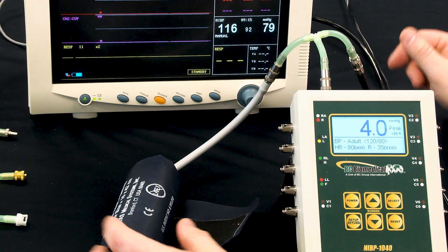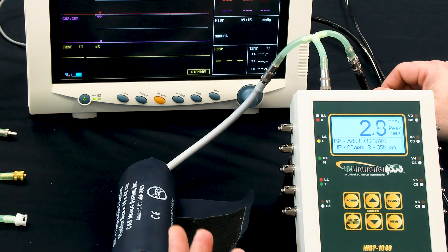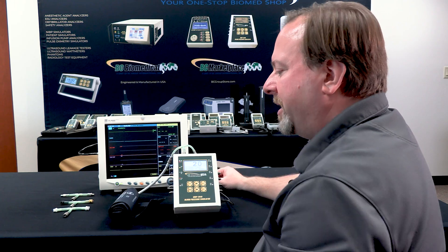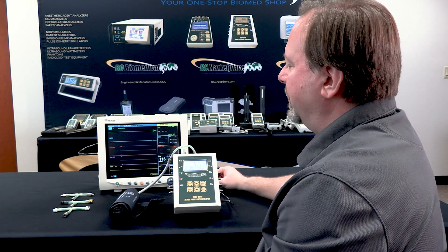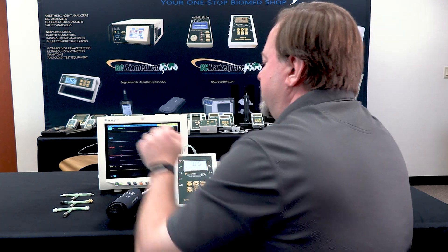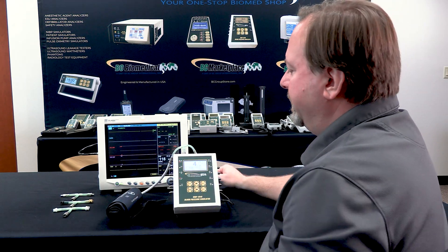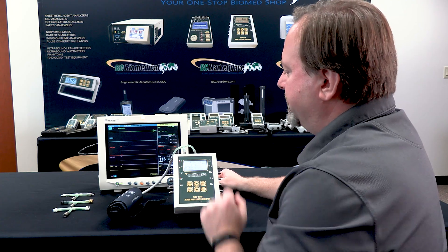Now this was our first measurement. The cuff was completely deflated, and there's always a little bit of residual pressure in the cuff in between measurements.